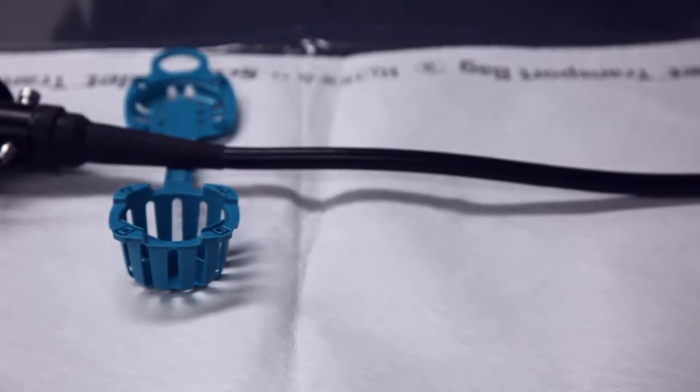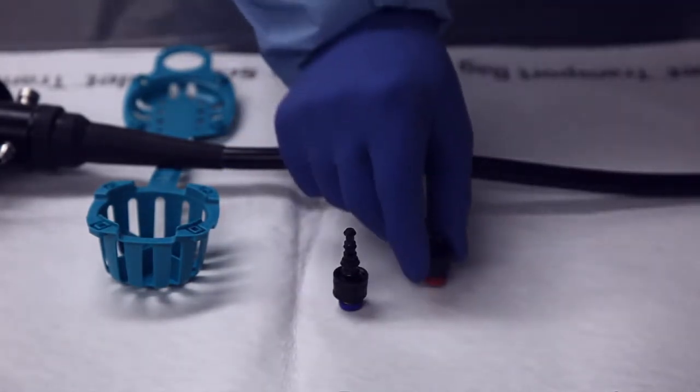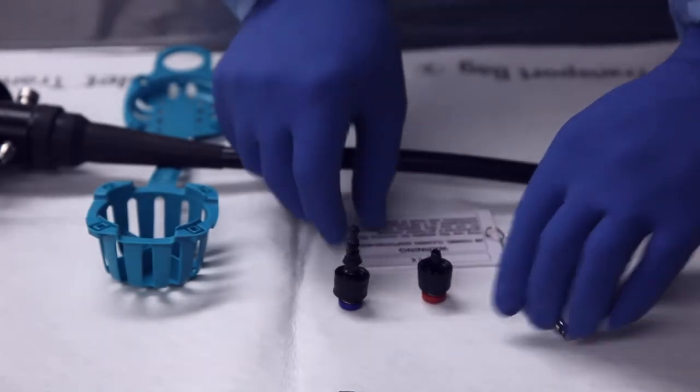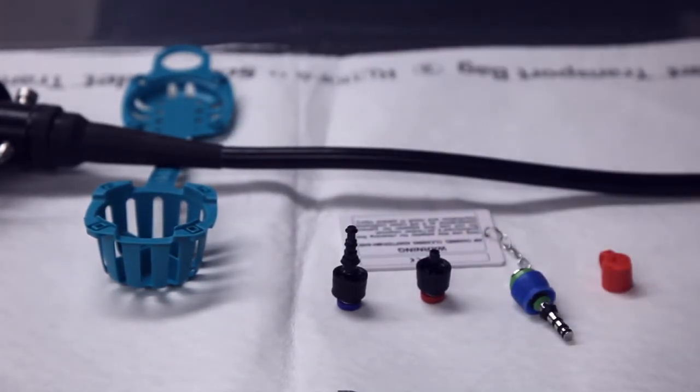ValveSafe is able to take multiple valves, including the air-water valve, suction valve, air-water cleaning adapter, and biopsy cap if not breached.